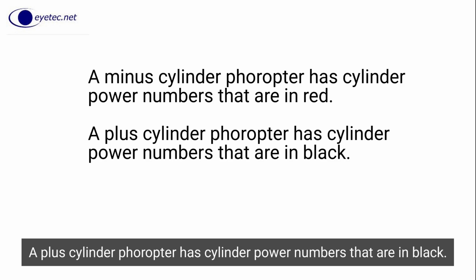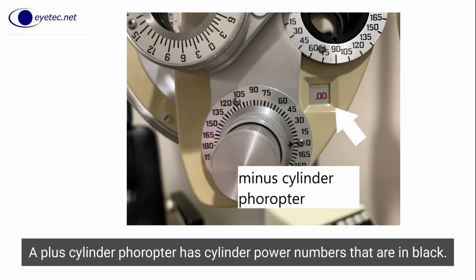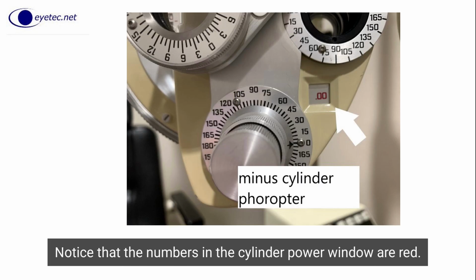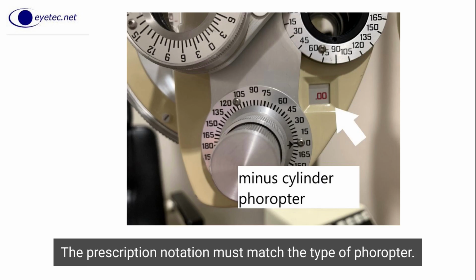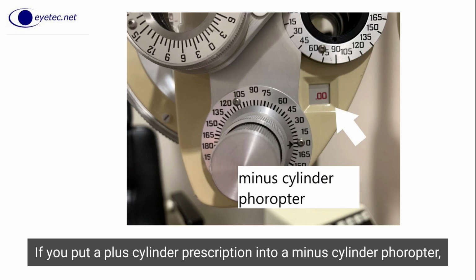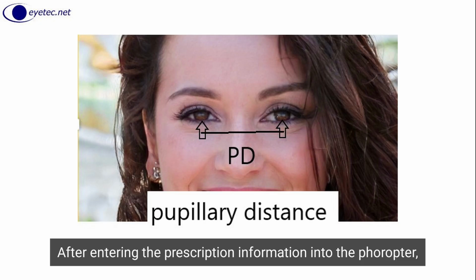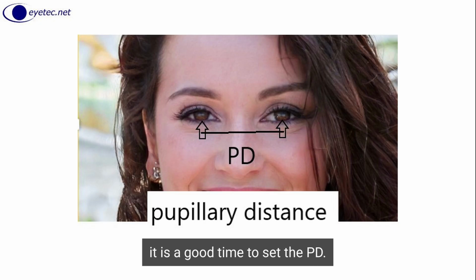A plus cylinder phoropter has cylinder power numbers that are in black. This is a minus cylinder phoropter. Notice that the numbers in the cylinder power window are red. The prescription notation must match the type of phoropter. If you put a plus cylinder prescription into a minus cylinder phoropter, the patient will not see well as you begin your refraction. After entering the prescription information into the phoropter, it is a good time to set the PD.